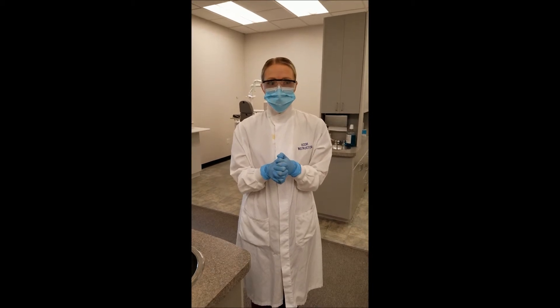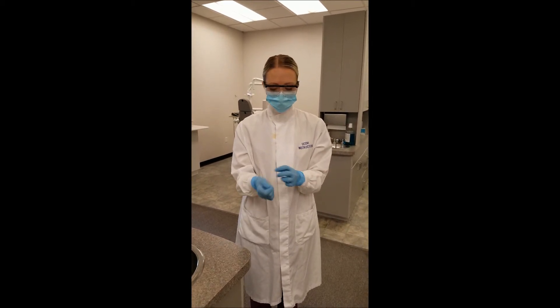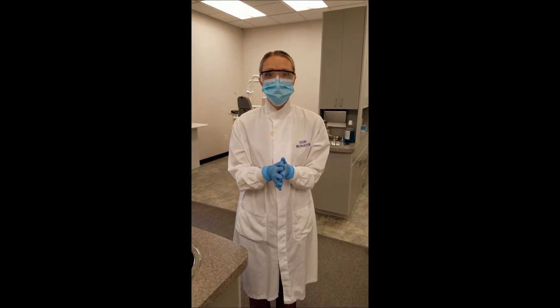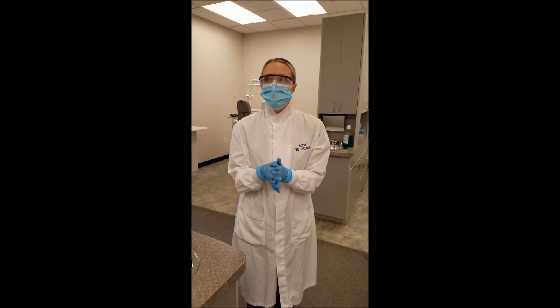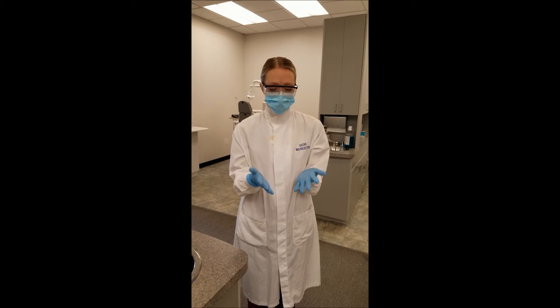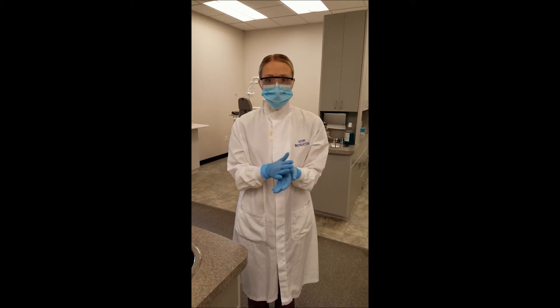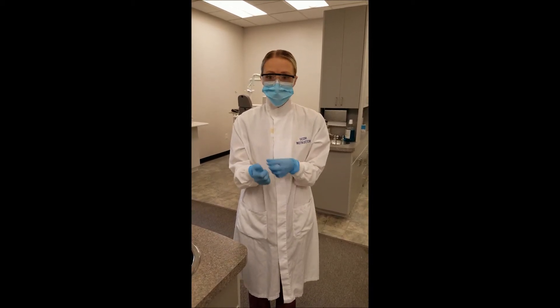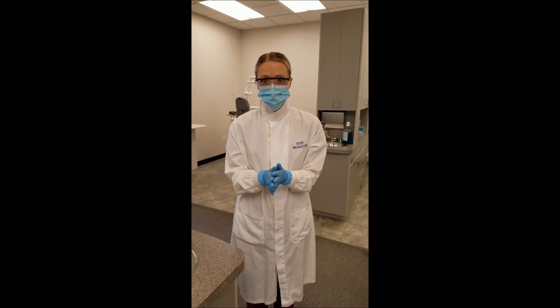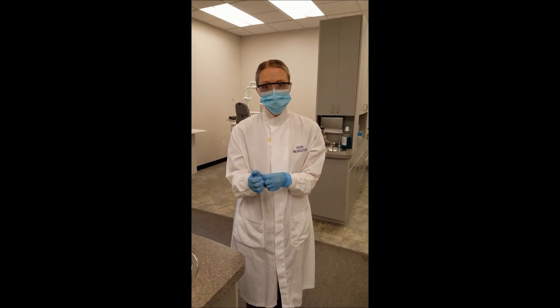Identify post-glove removal hand washing: remove gloves and immediately wash hands. Identify the protocol for damaged or defective gloves: if a glove has a damage or defect, immediately remove the gloves, rewash hands, and place new gloves.